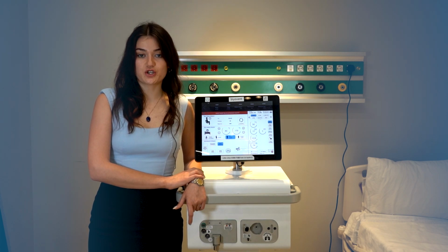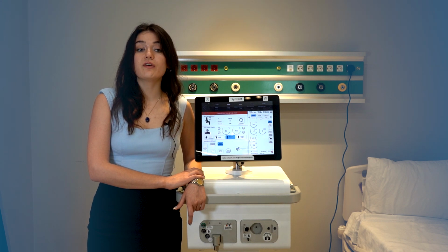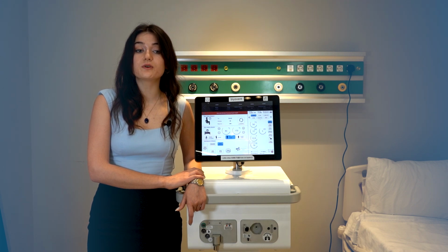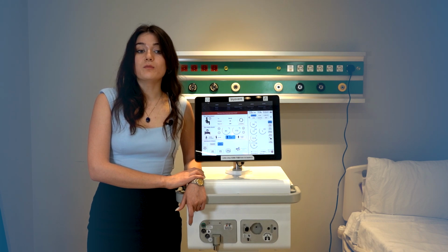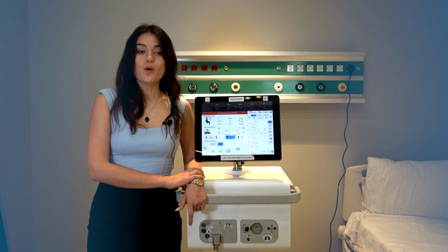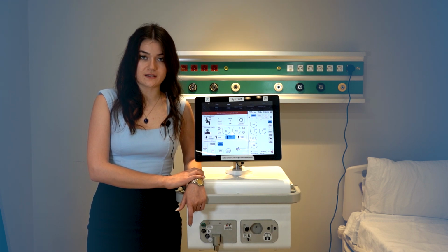Pressure-controlled ventilation ensures oxygenation and ventilation by keeping the pressure applied to the patient's lungs at a constant level. The pressure-controlled ventilation mode is designed to support the patient's respiratory muscles and reduce their breathing effort. However, the most suitable ventilation mode for each patient is usually determined based on clinical evaluation and the patient's response. Now, we will show you pressure control modes in the Biyovent ICU type ventilator.